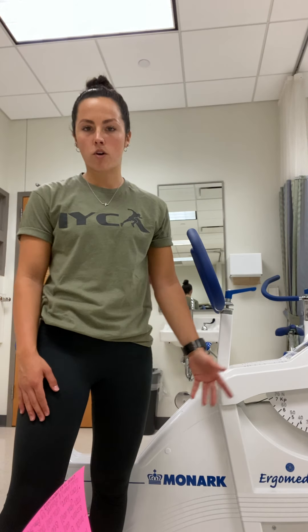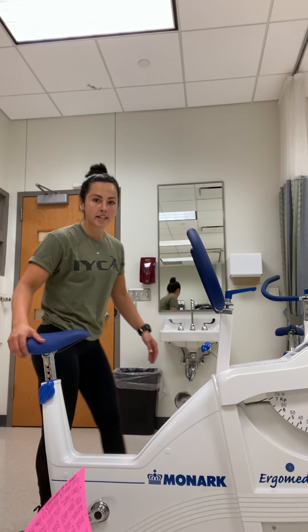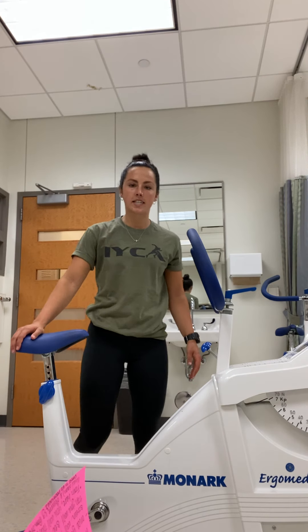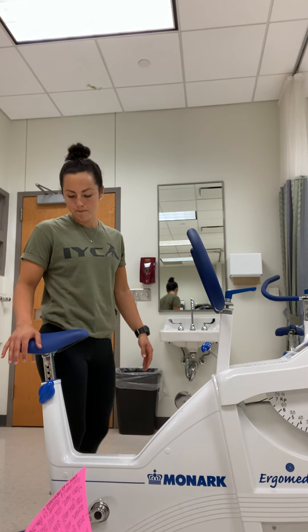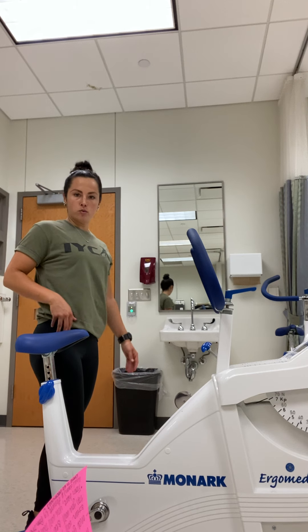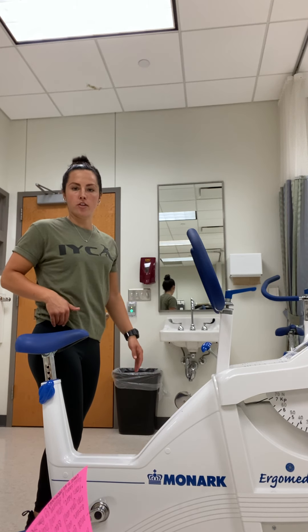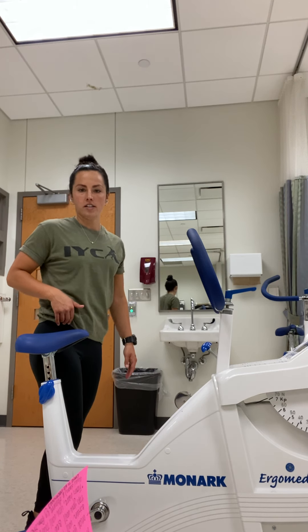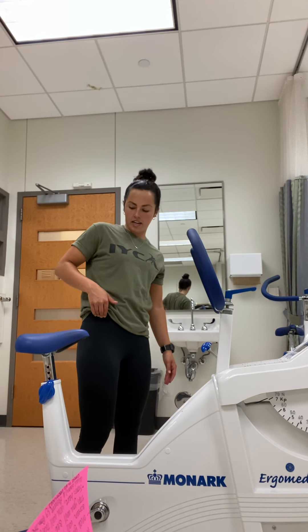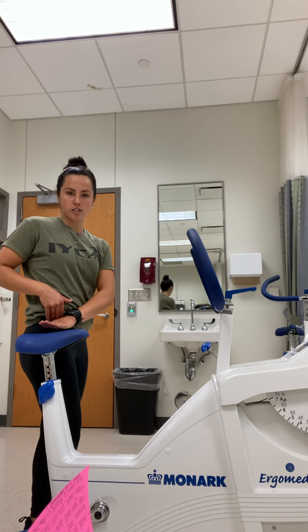Before you have your client hop on the bike, there are a couple things you want to look out for in terms of setup. One is adjusting the seat height according to the client's height. A good marker you want to look out for is to align the seat height with their iliac crest. So right at the top of the iliac, you're going to align that seat height.